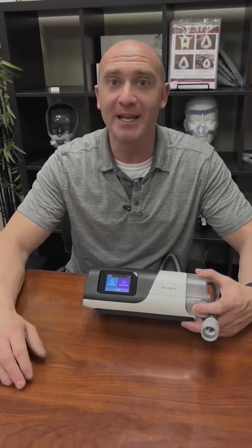I'm going to go over changing humidity on your AirSense 11. A lot of this applies to the AirSense 10 too. A lot of people will have asked, how do I change my humidity? Can I change my humidity? And the answer is yes.